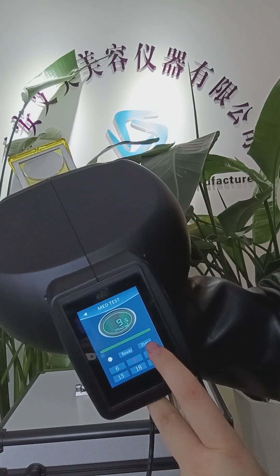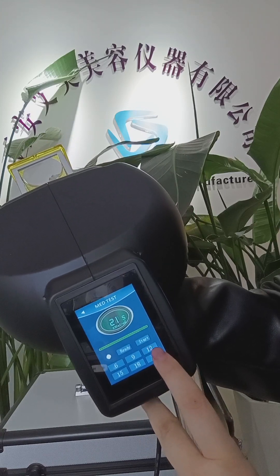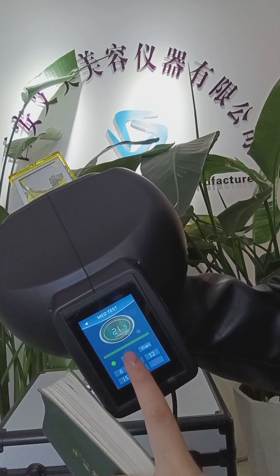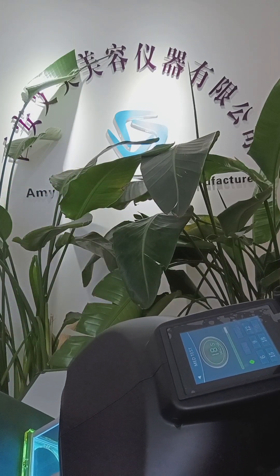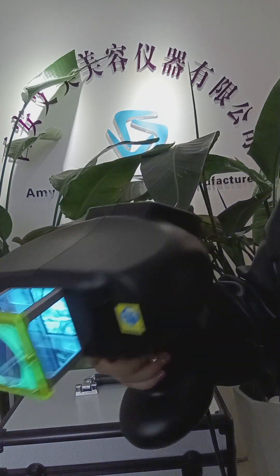If you use MED mode, you can choose the time — for example, six times or 21 seconds. Then press ready again. You can see the lights.